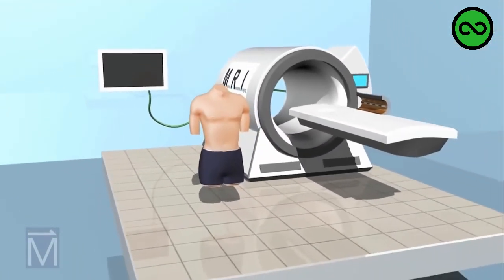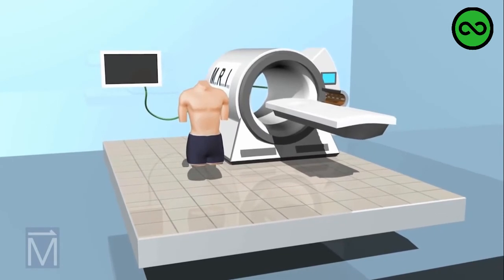The radiologist uses multiple RF pulses at different powers and in different sequences to manipulate the signal from those parts of the body.